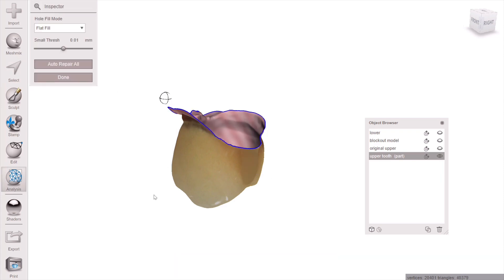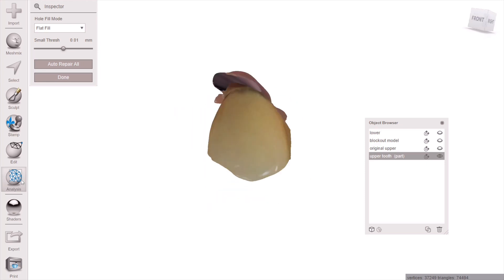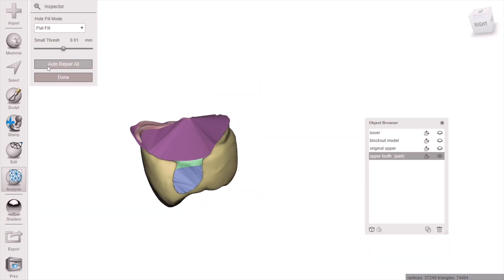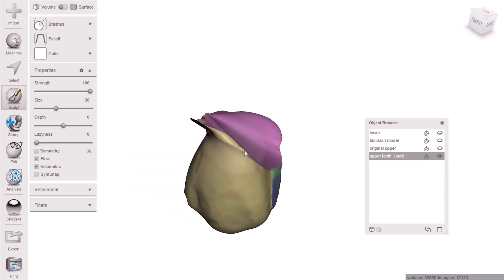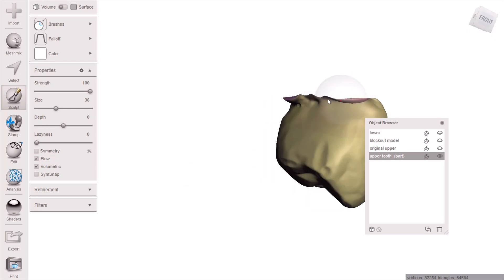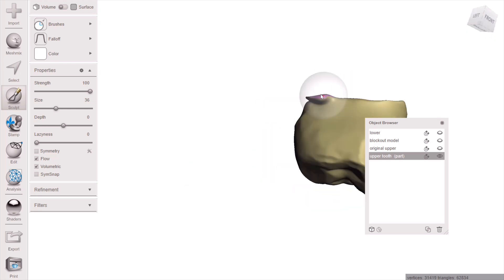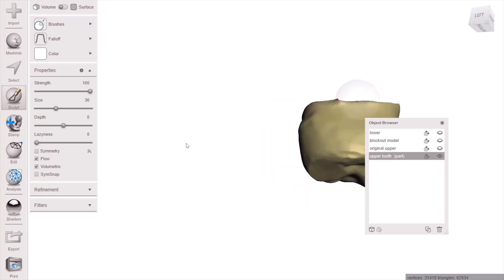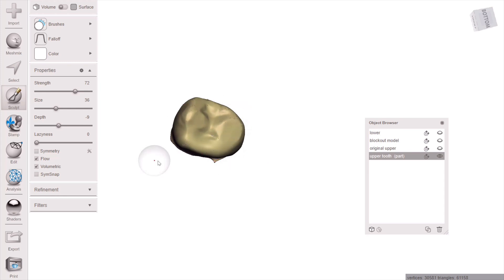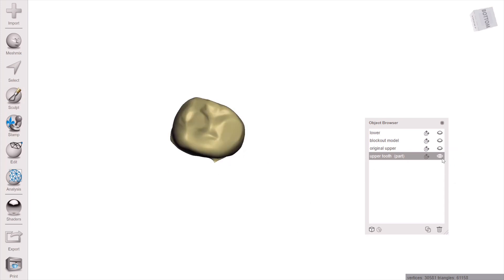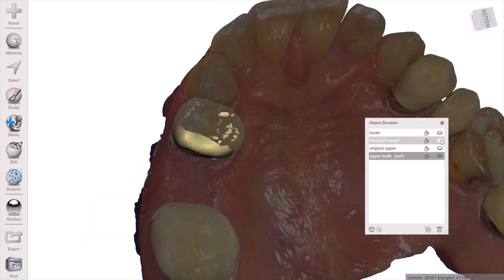Then go to Analysis > Inspector and repair the proximal contact first, then the basal pontic area — go ahead and repair. Now smooth using either bubble smooth holding Shift, or just regular robust smooth on the sculpt brushes, and smooth that all up. Basically, we've generated a copy of tooth number five.